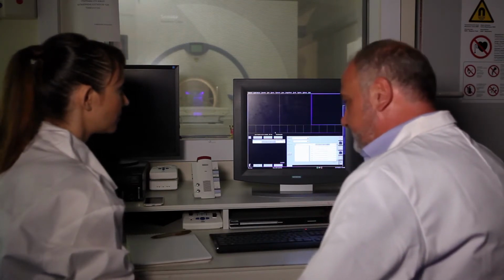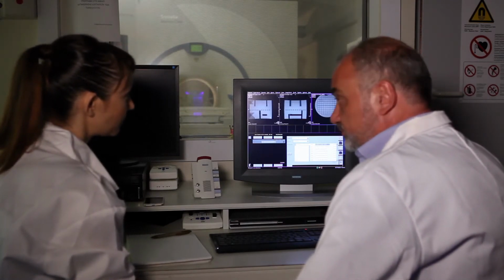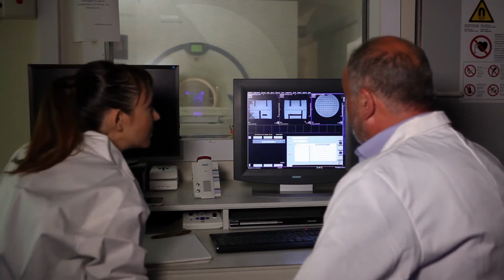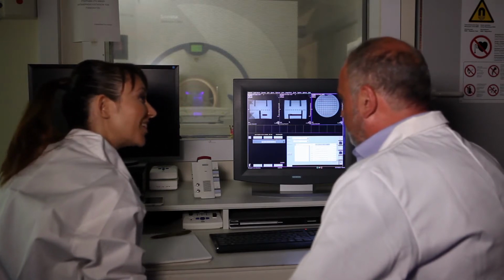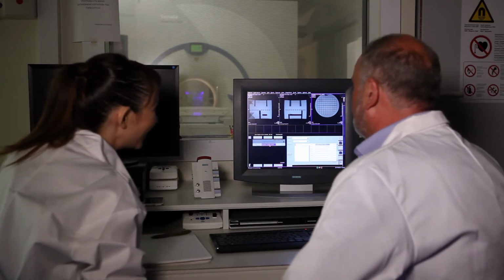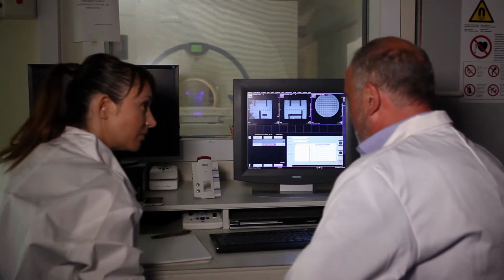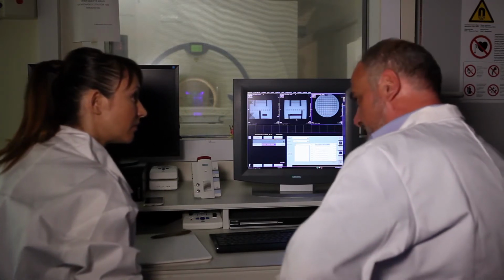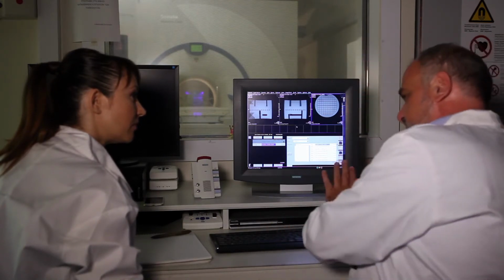Okay, we hear the sound, and we get the first images of the phantom. Does it look a bit distorted, geometrically distorted? It is. Should we correct for that? Not for the time being, but I can do it for you if you like. We know that this system has steep gradients in this case, so we have a problem with non-linearities. It's not a real problem because the systems can correct this issue.